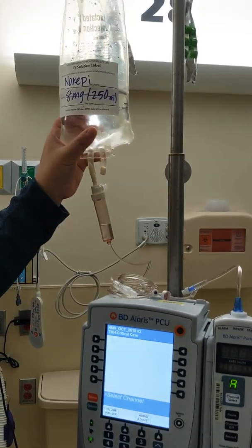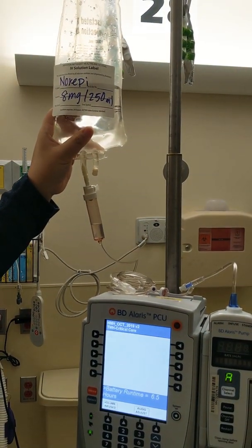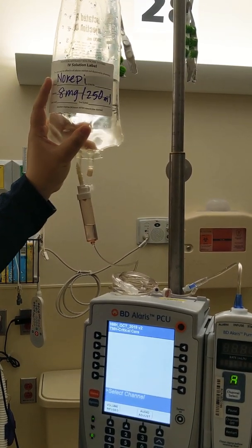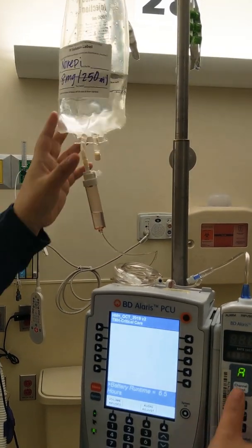I'm going to show you how to program a norepi on the pump. This one is 8 mg in 250 cc — that's a standard dose.